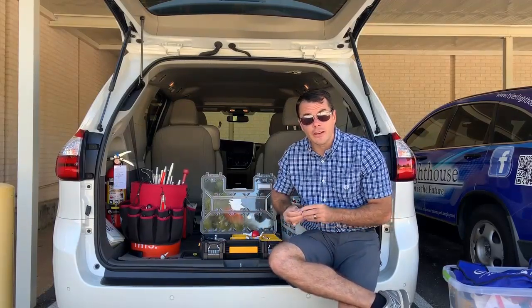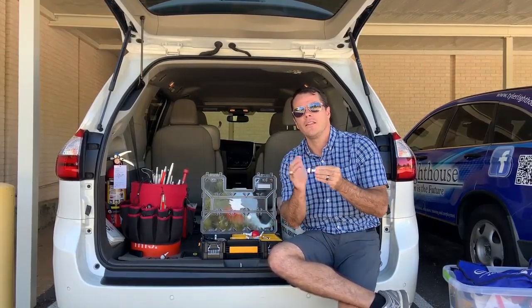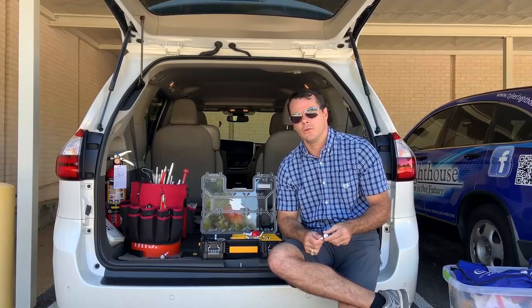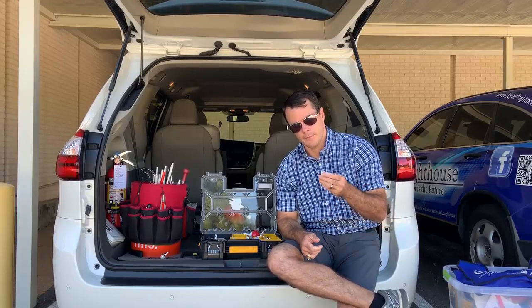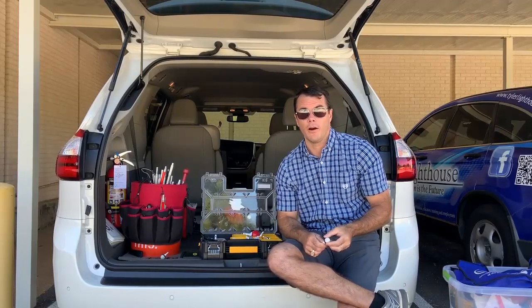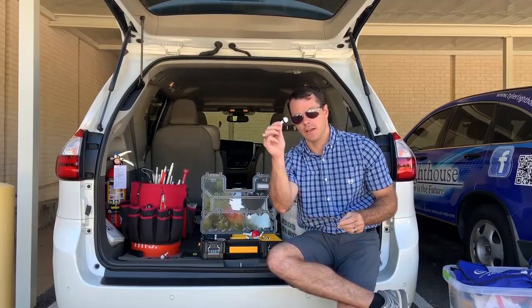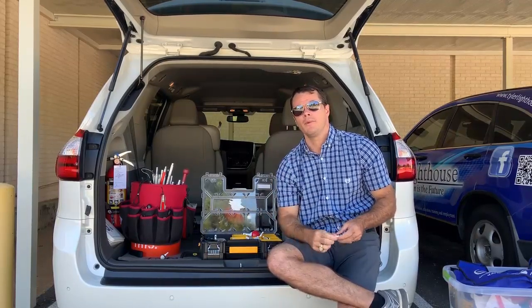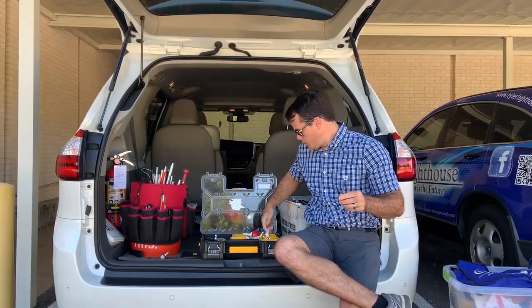Coming up to my favorite here, guys — this is the ceramic tip. This thing is awesome. I absolutely love this cane tip. I love the audible feedback and the tactile feedback you get from this particular tip. It just seems more responsive, both audibly and tactually. This one is my go-to if I'm working with somebody that doesn't have other issues going on — hands down, I'm going to go with this. It lasts forever. I refer to this as the gobstopper of all cane tips. If you haven't used this one yet, I promise you, you won't be disappointed. If you're working with somebody who's got other issues going on, you may need to modify.